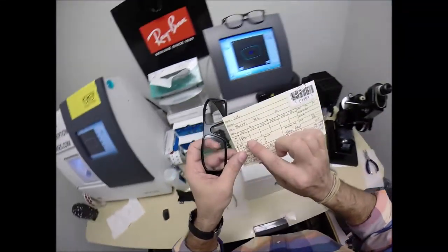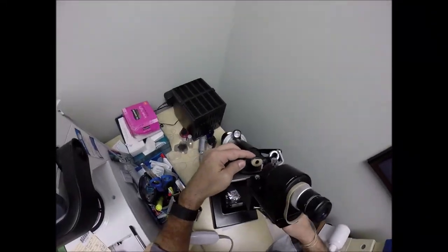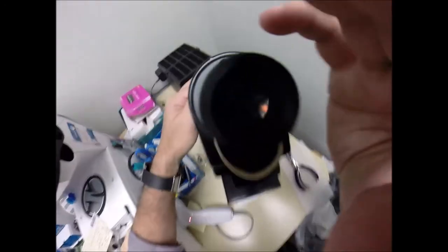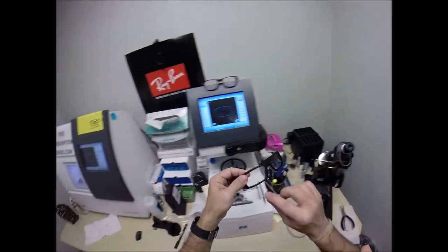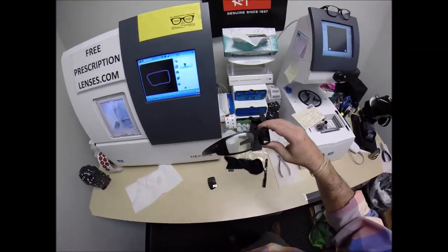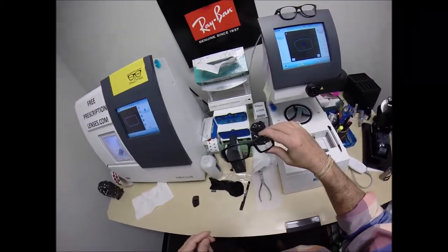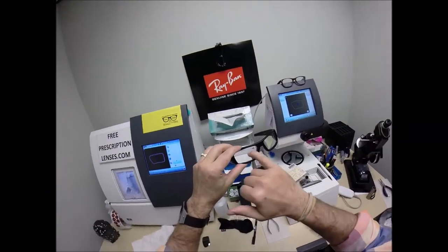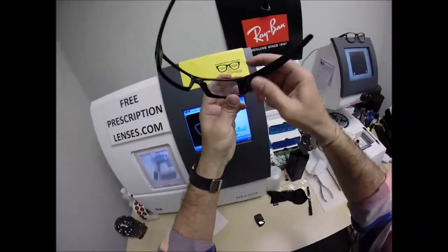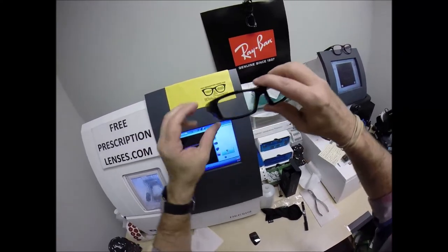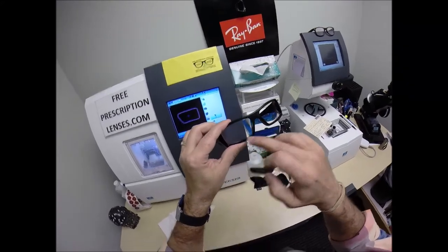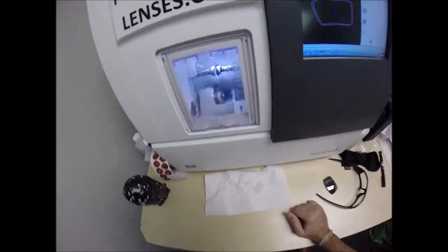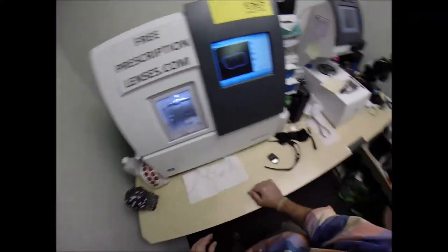We're going to come down here. Your prescription, plano in both eyes, no power whatsoever, zero power. I'm going to read the prescription. I get three skinny spherical lines as well as three thicker astigmatic lines. They all come into focus at the same time on zero. So you have no power whatsoever. Your full power is in the bottom of the lens for your reading portion. He's a mechanic who gets tired of taking his reading glasses on and off. You have plus two at the bottom reading.